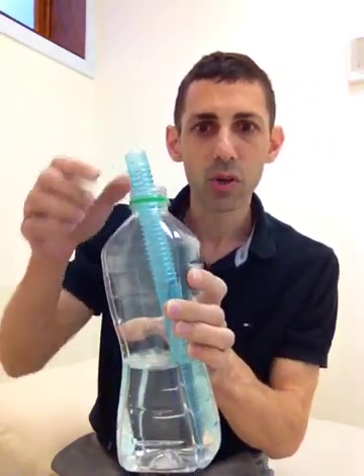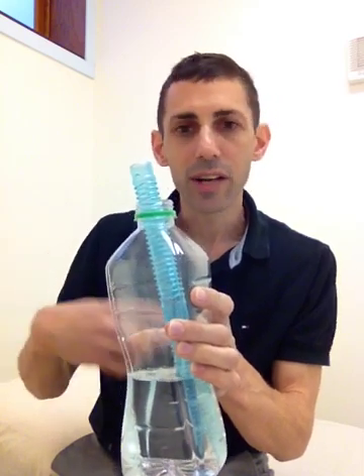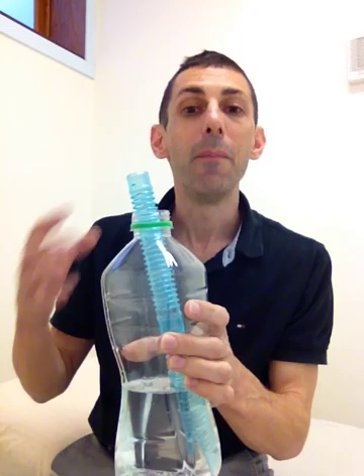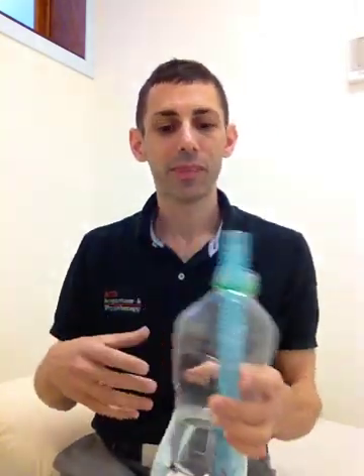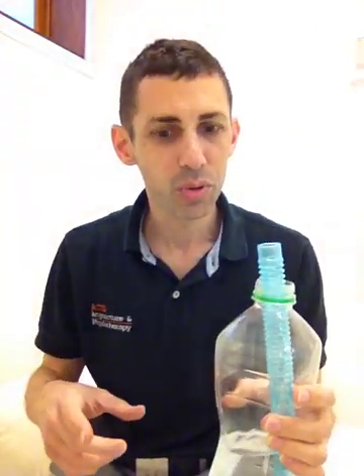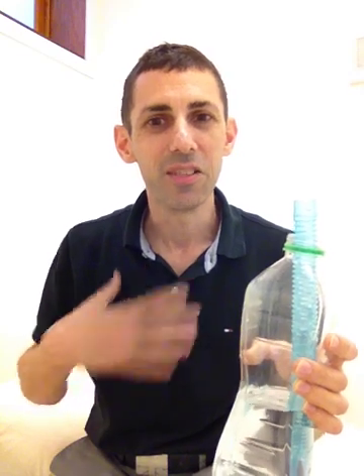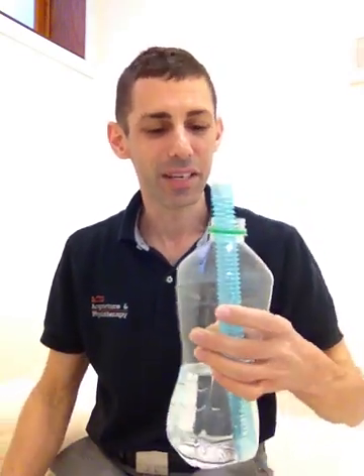And when I blow in through this tube, the bubble that is created through the water again sends that oscillation back down to my bronchial tree. Let's have a look. Don't blow too hard if the water is a bit too high because it will come up at you. And I've had kids with water down their chest and all that sort of thing. Let's have a look here now.